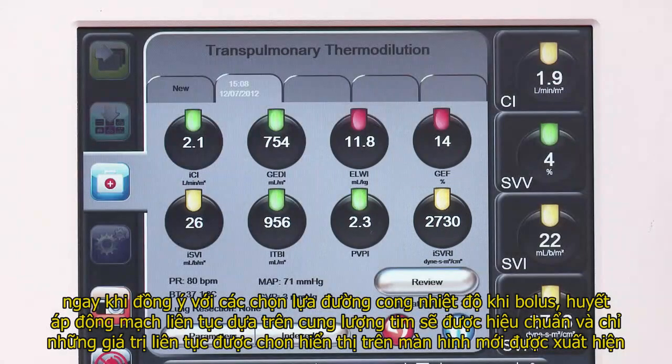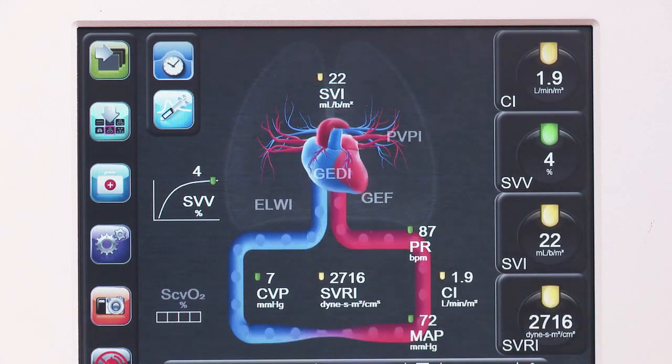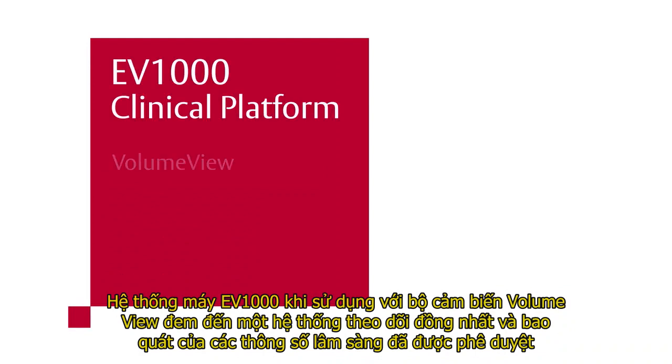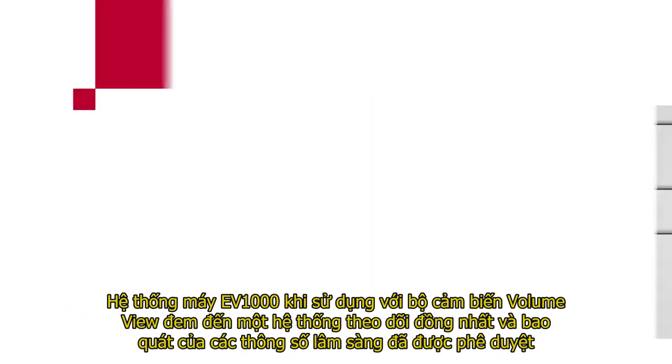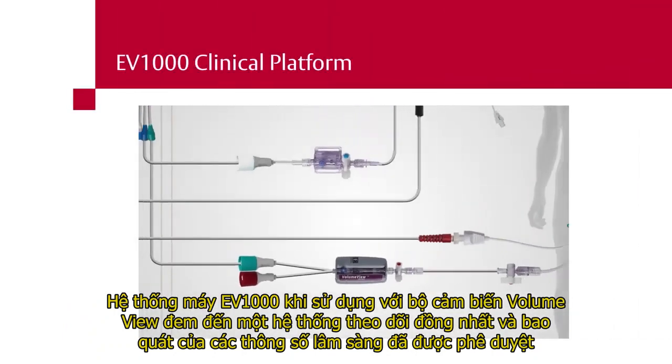Once Accept has been selected after editing the boluses, the continuous arterial pressure-based cardiac output will be calibrated, and only the continuous values configured for display on the monitor will appear. The EV1000 clinical platform, when used with the VolumeView set, offers a complete, unified monitoring system that provides a holistic view of clinically validated parameters.